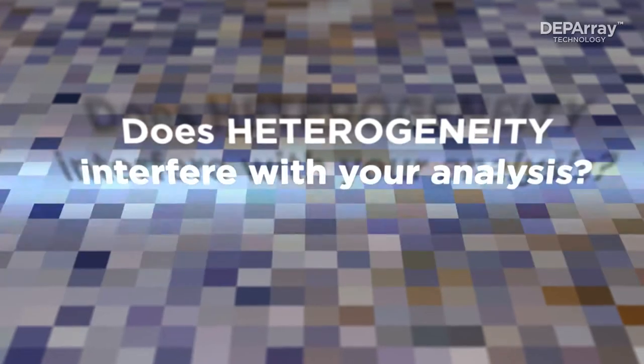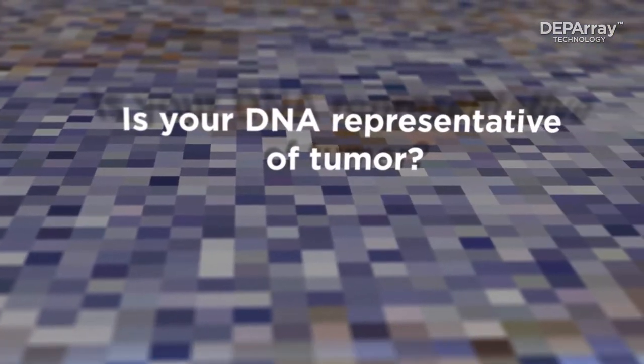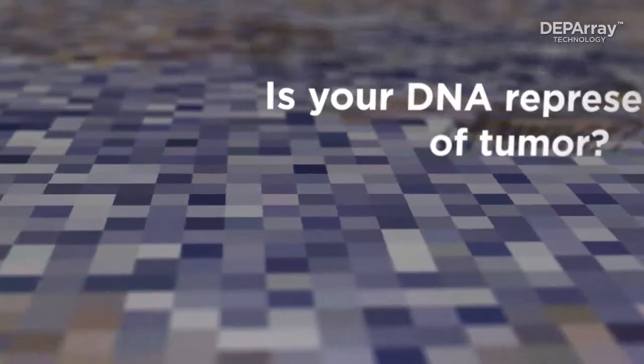For DEP Array, FFPE sample size is never too small or too complex to be representative, never badly preserved or prepared.